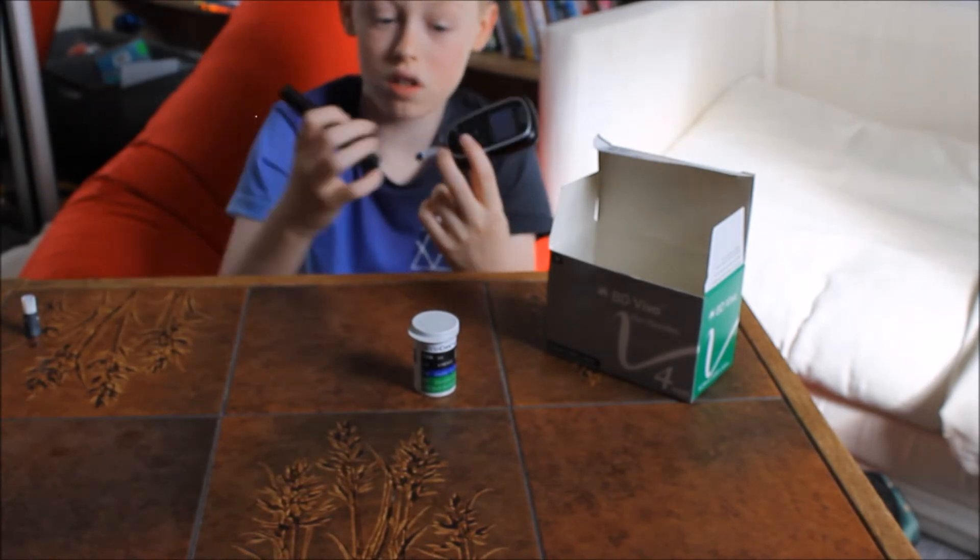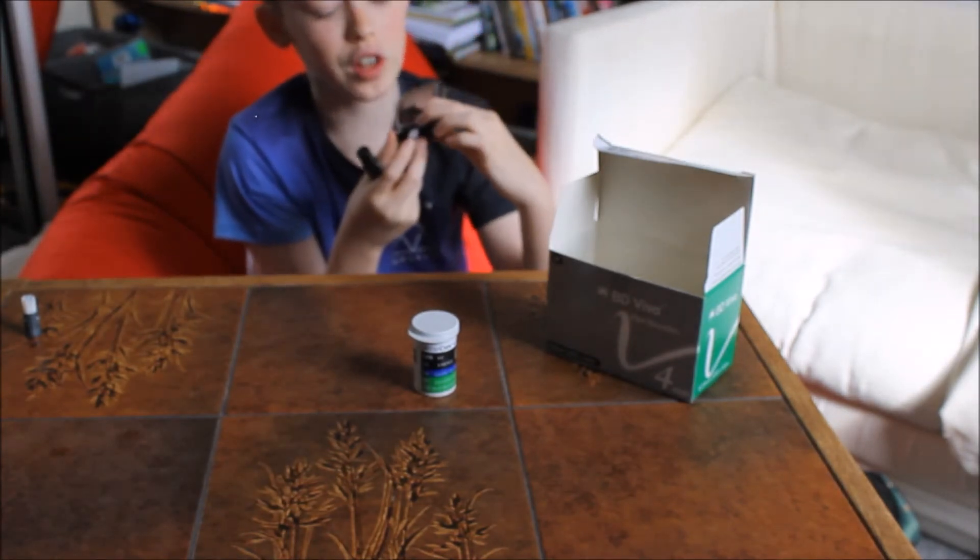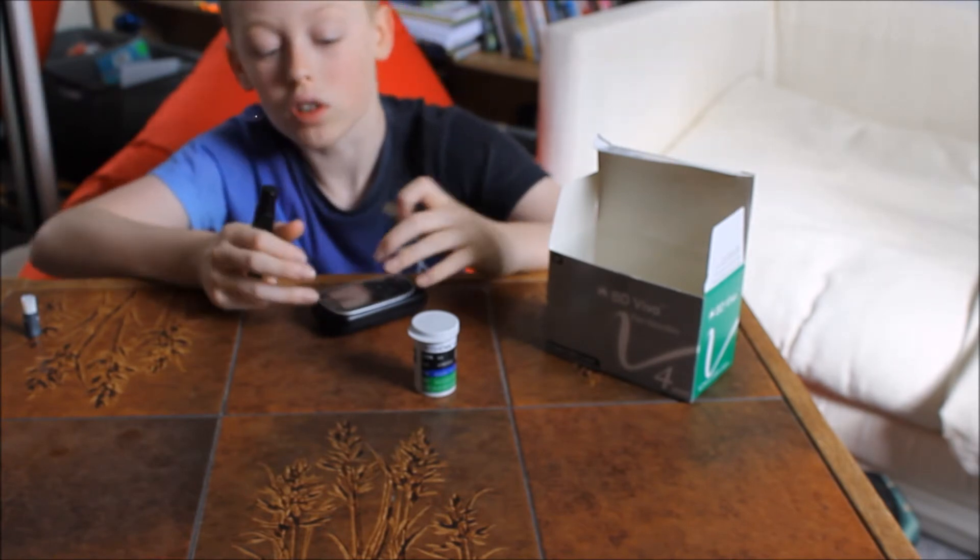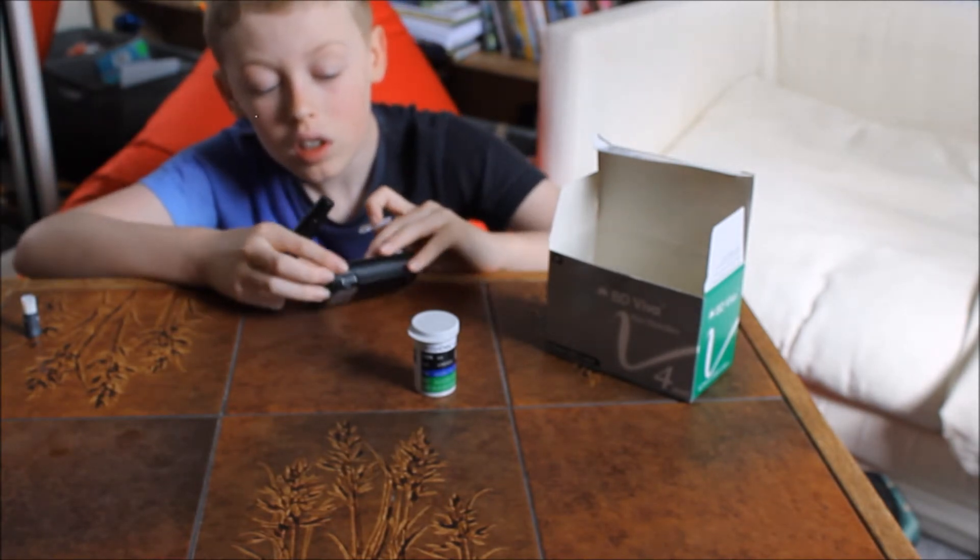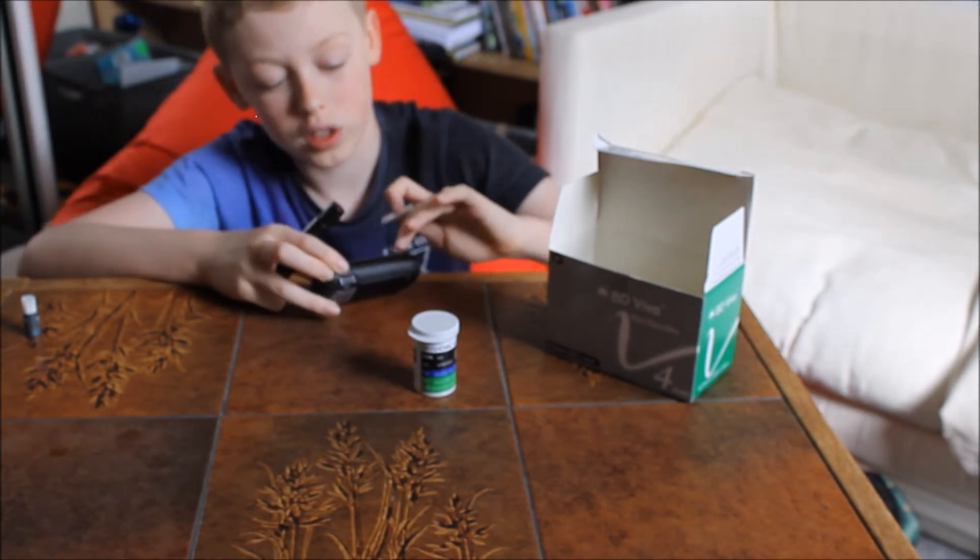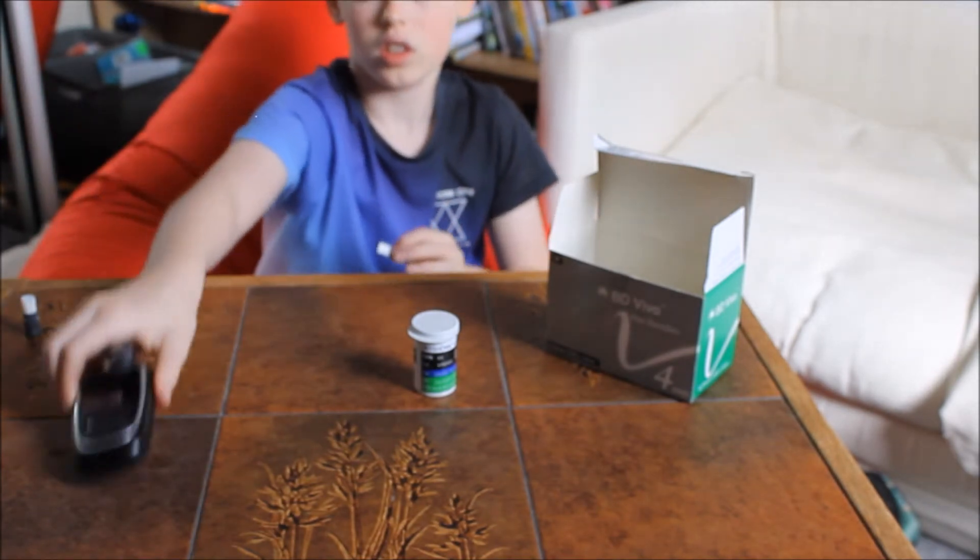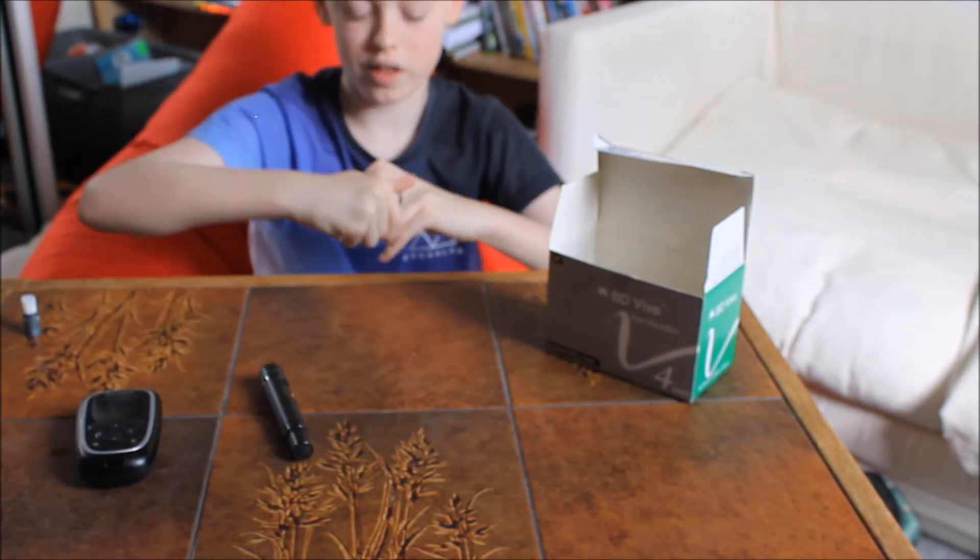Obviously I would use this to get the blood, and then you just put it onto this yellow bit here. I'm not going to do it right now because there's no point. I'll put this back in here.